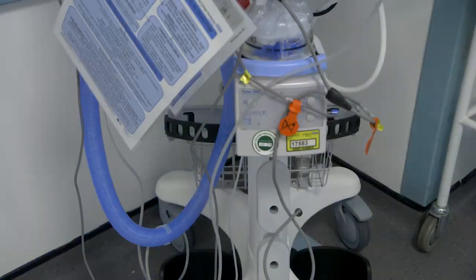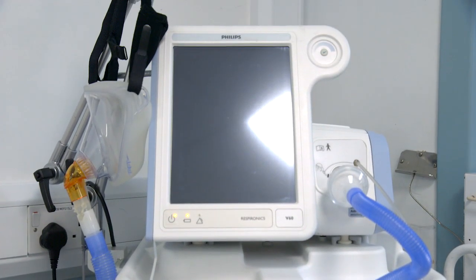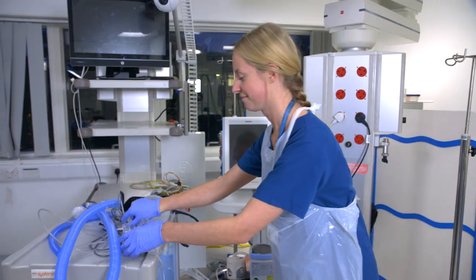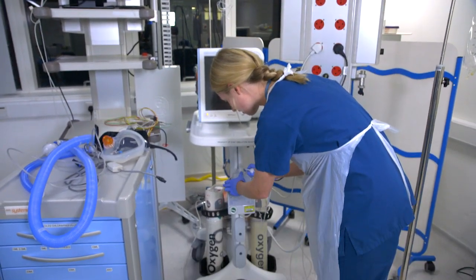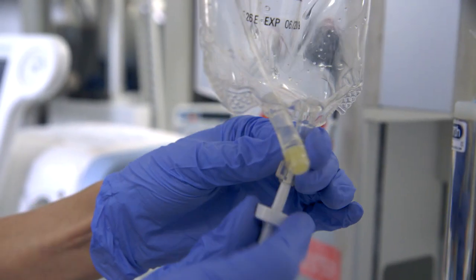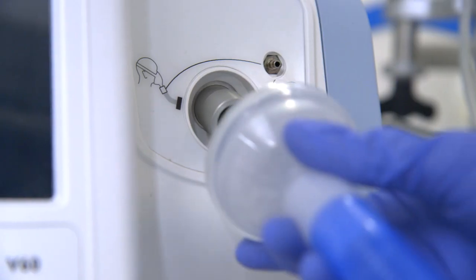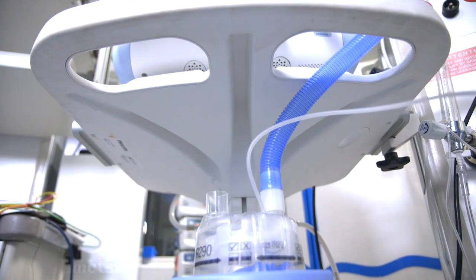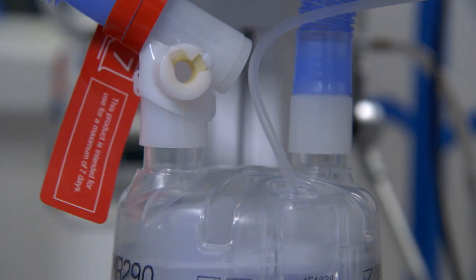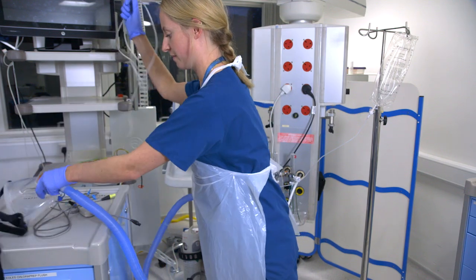NIV should be set up by a competent practitioner. Before setting up, ensure all equipment is available including a humidified circuit, different size masks, and a humidifier box. Plug the V60 in and connect to the walled oxygen. Connect the circuit with pressure line to the ventilator, ensuring there is a bacterial filter within the circuit. Attach the water chamber to the heating plate, then attach to a bag of sterile water. Attach the bacterial filter to the circuit and then to the ventilator. Attach the other end of the short circuit to the humidification box. Prepare the mask using the larger piece of the circuit by attaching it to the humidification box and placing the port at the patient end. Attach an appropriate size mask and ensure the pressure cable is attached at both the ventilator and mask end.